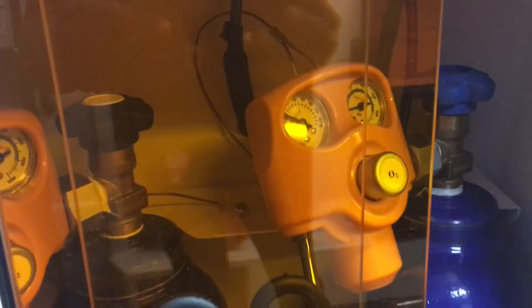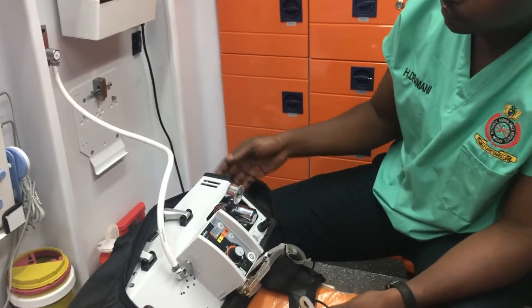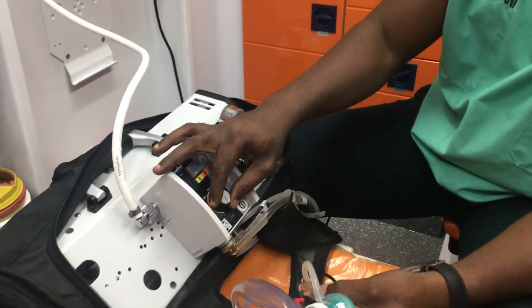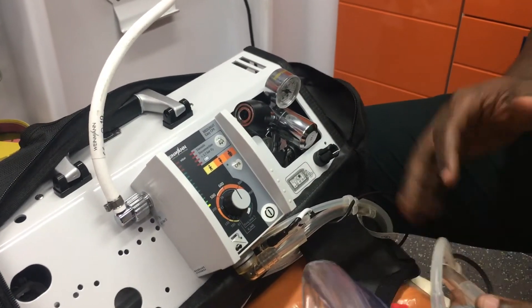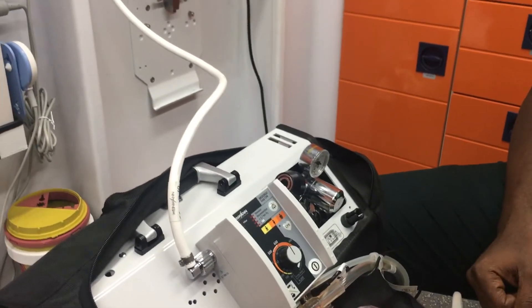We open the cylinder and now we'll be operating from the big mounted cylinder. The oxygen is already opened. We adjust and the oxygen starts to flow. At this point the vent is depending on the mounted oxygen cylinder in the vehicle.